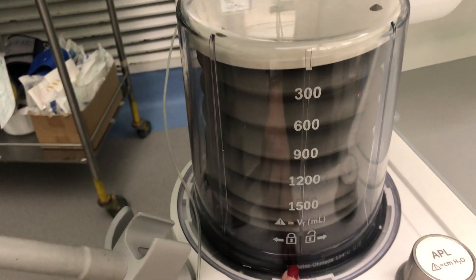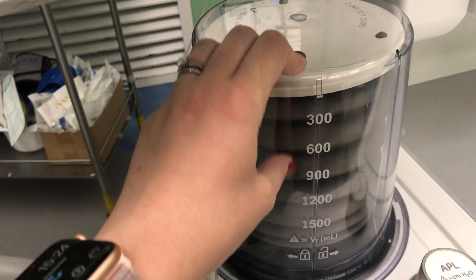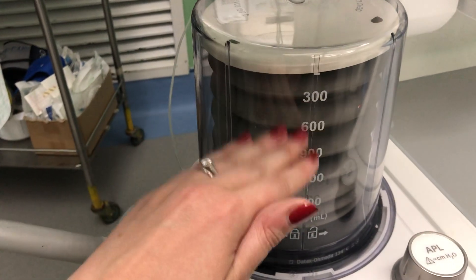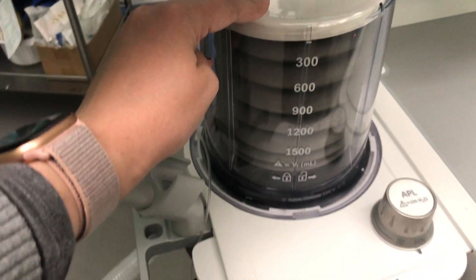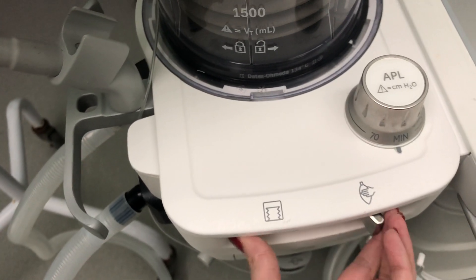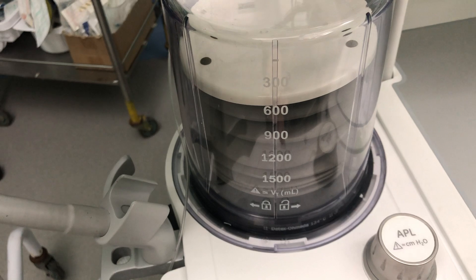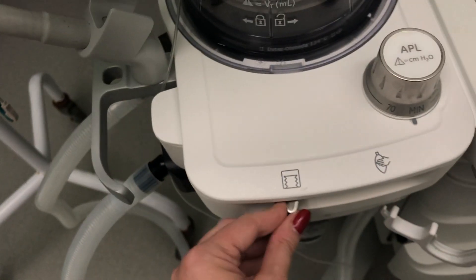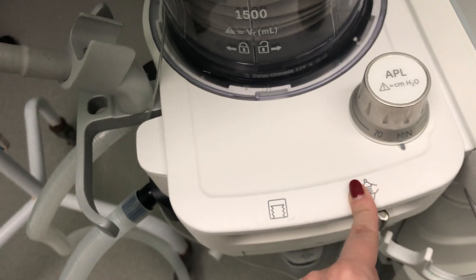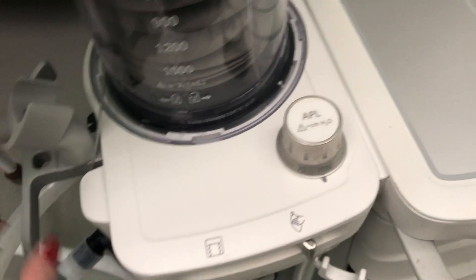Up here are the bellows of the ventilator, clearly marked on the side. The bellows move from top to bottom depending on the tidal volume set, moving up and down as you ventilate the patient. There is a switch to choose between two options: either the patient is being ventilated by the ventilator, or the patient is breathing spontaneously, or you will need to hand-bag or bag-mask ventilate them.